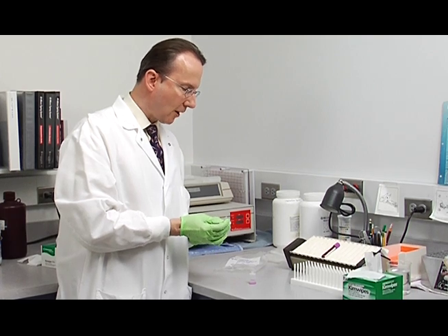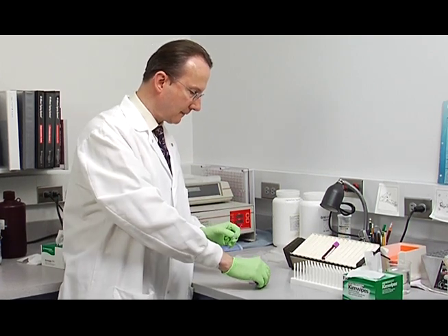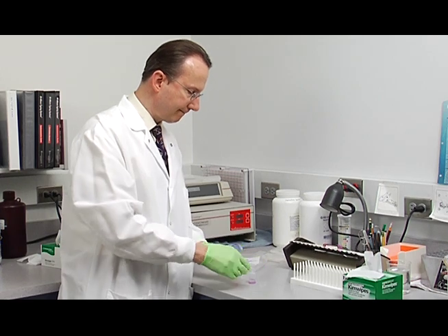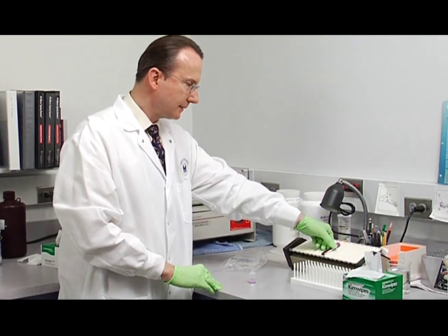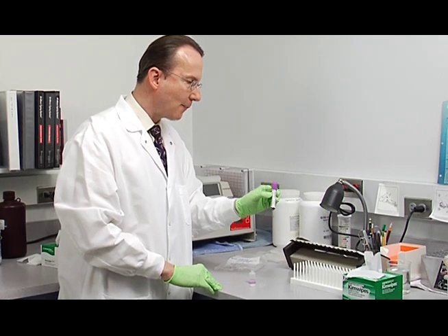Then you can take the guard off the capillary. Now we'll need to take the cap off the specimen.